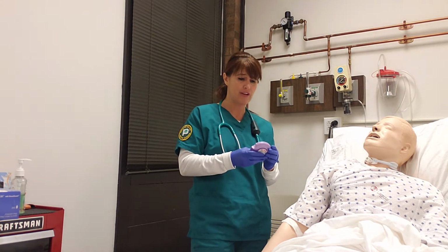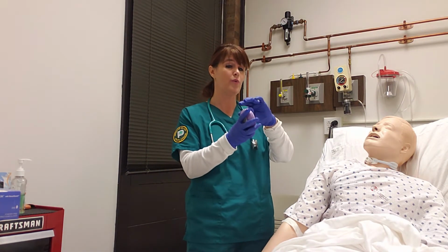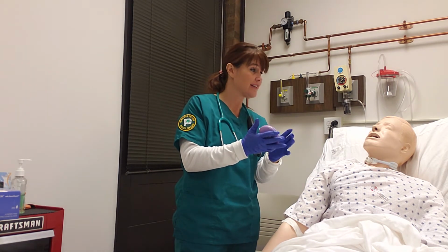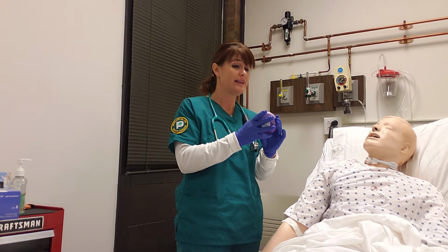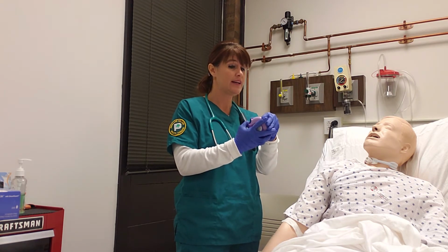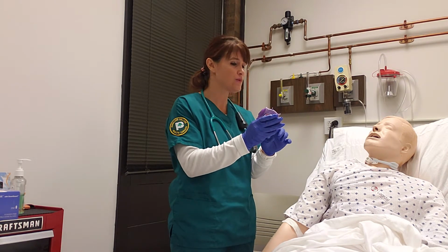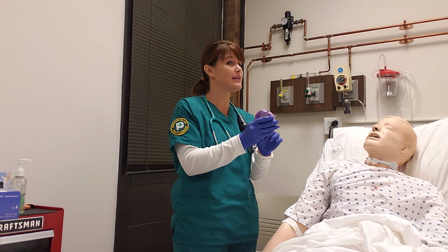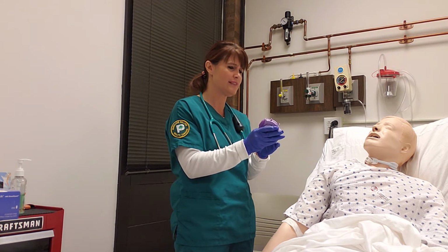Okay, a couple other very important things: there's a counter on here. When you open this disc up, the number is going to go down and it's going to click. When that number goes down and it clicks, then your medicine has been loaded. Now another thing: when you get down to about a 9, make sure you contact your physician and have another prescription waiting for you at the pharmacy, because you don't want to run out and you don't want to wait till the last minute.